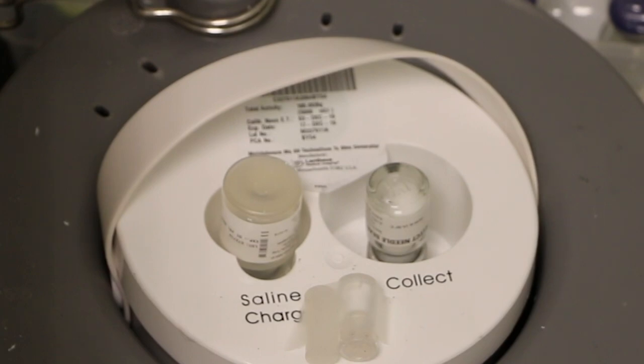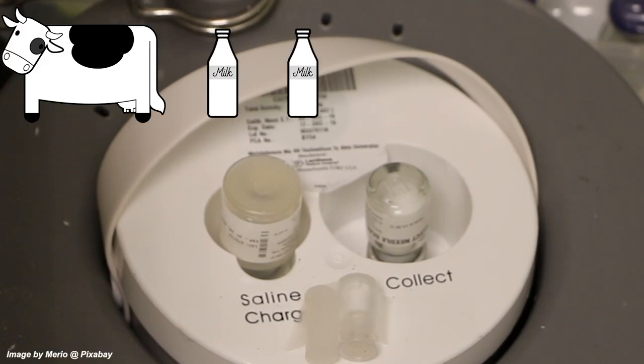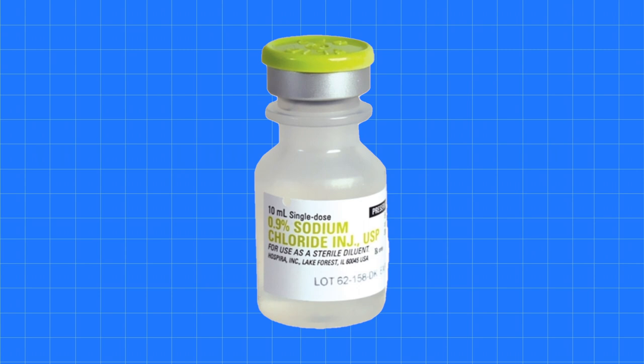Owing to the rate of activity of the generator, we can elute or milk the generator up to twice a day. The generator reaches near full equilibrium after about 18 hours. A standard general-use saline charge vial is suitable for flushing the concentration of the daughter radionuclide, technetium-99M, from the generator.